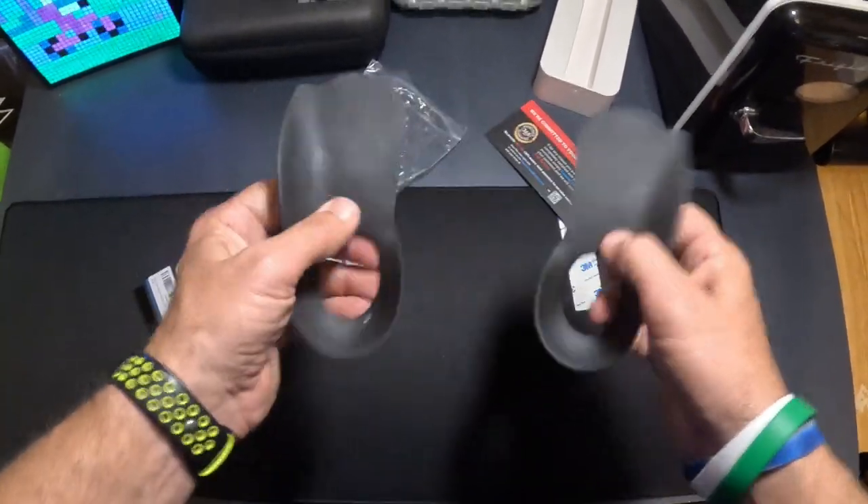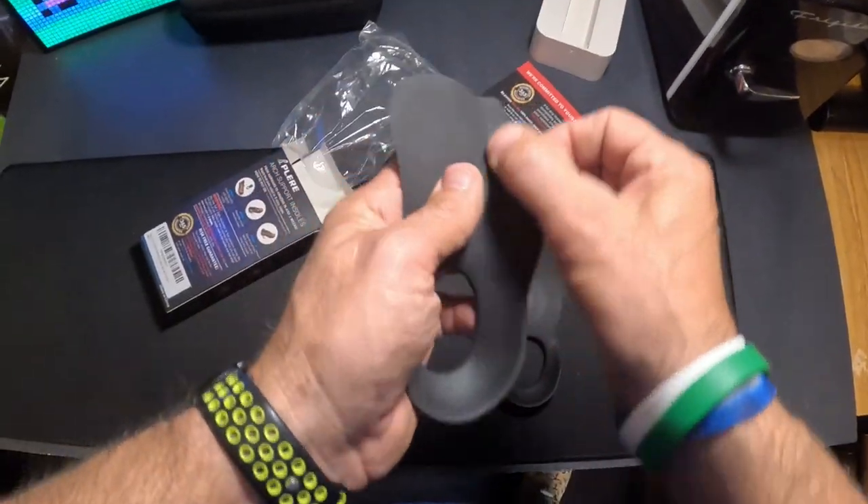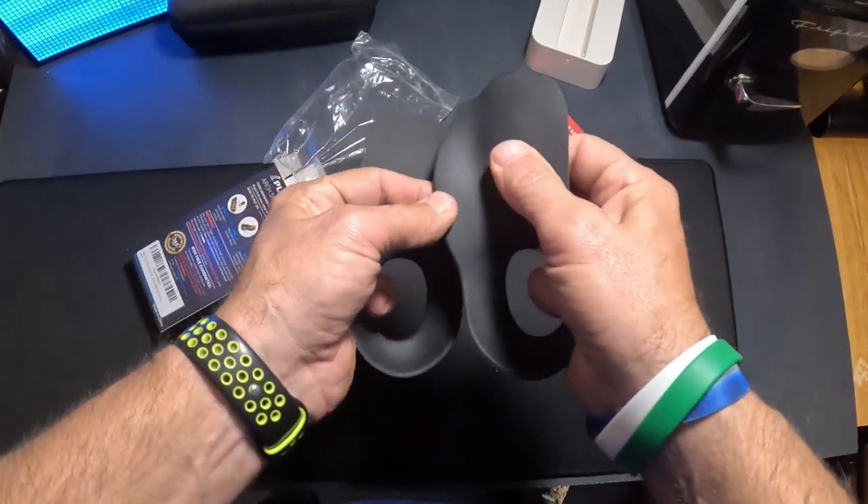I did put them in there and you can see this is the right and this is the left. Just think of how the instep is right there on the left side, and right here is the right side.